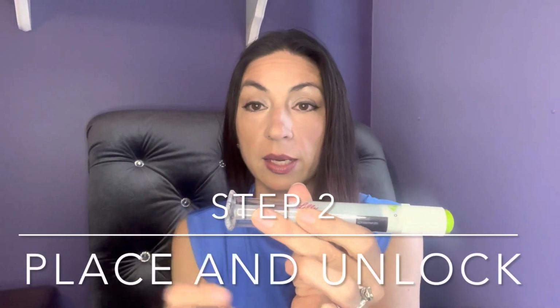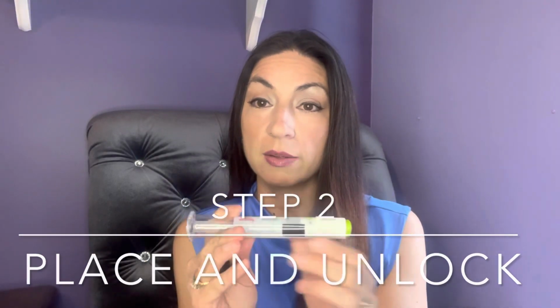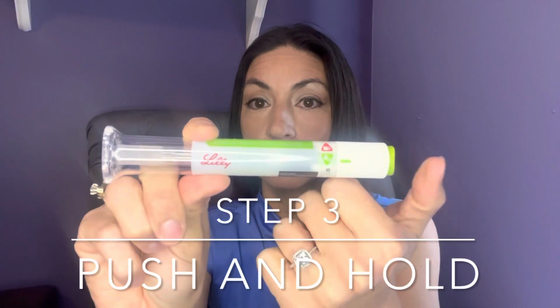This clear end, you're going to place against your body firmly in one of those 3 areas that I mentioned. Next, you're going to take a look and you'll see that it is locked. So you want to unlock it. And then you're going to push on the green button here for about 5 to 10 seconds.